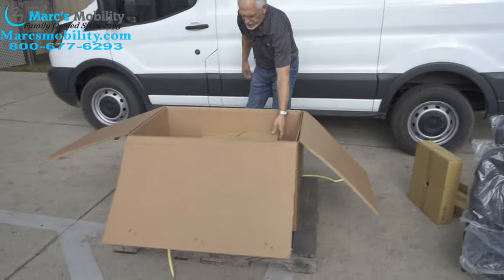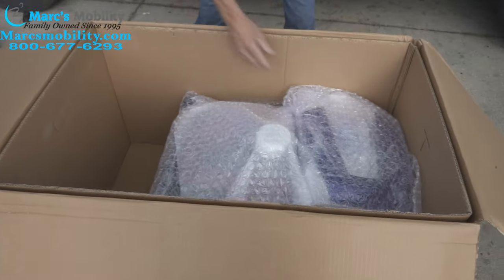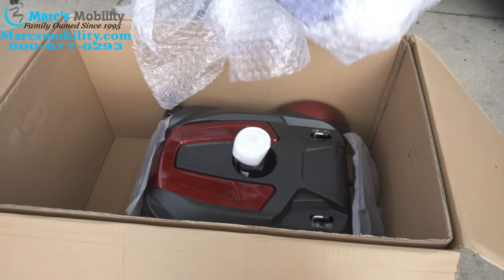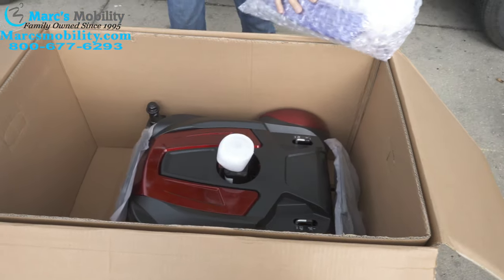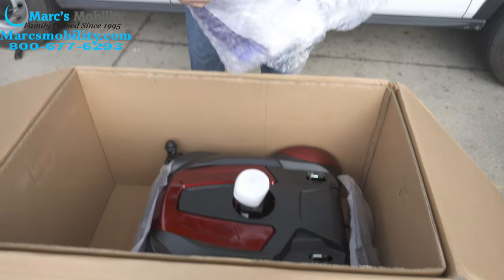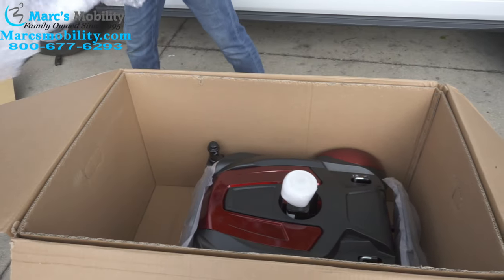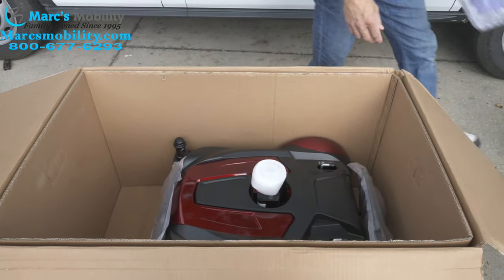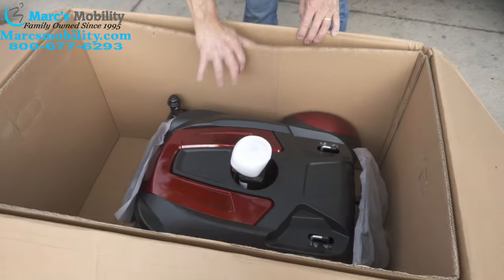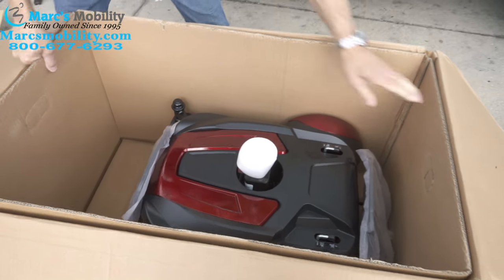That box is probably your arms. If you look inside the box again, there's not a whole lot left — you have your covers here. Here is your other covers; this is the blue part. Right now the chair is red, but if you want it in blue, everything is in this bag right here for the blue version, because this chair comes in two colors. Inside this box you have a liner right here all the way around — sometimes it's easier to just pull that liner out.